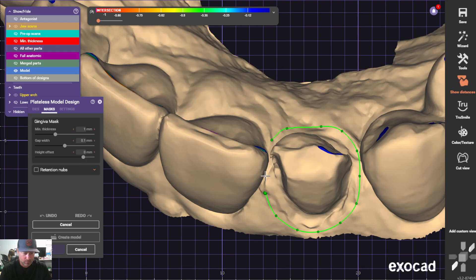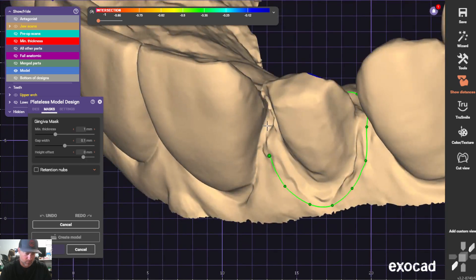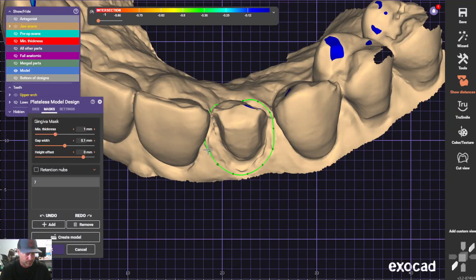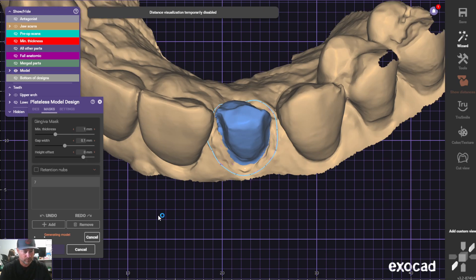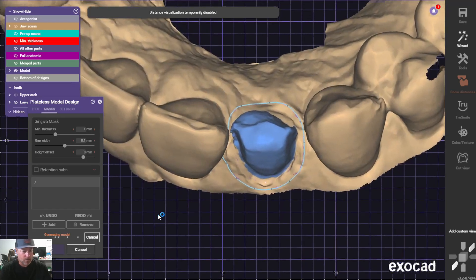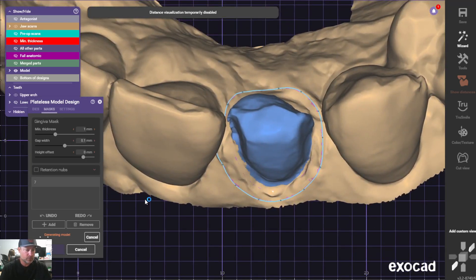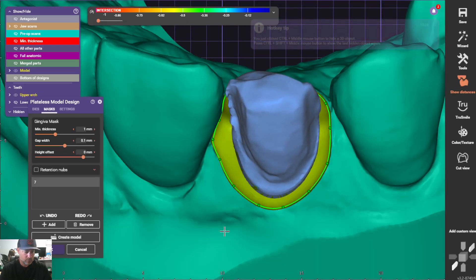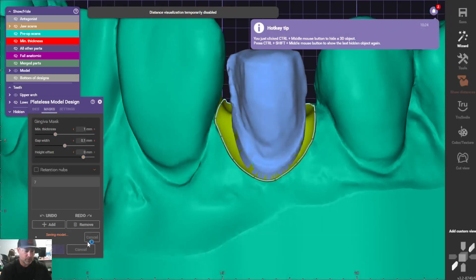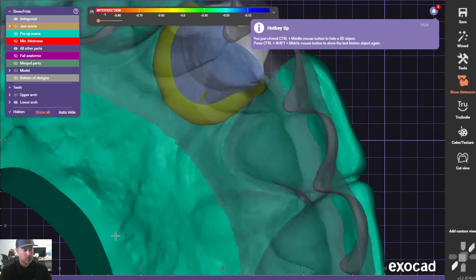Create the model, and then all you have to do is just not print your soft tissue scan. There you go — you have a ditched veneer. All done.